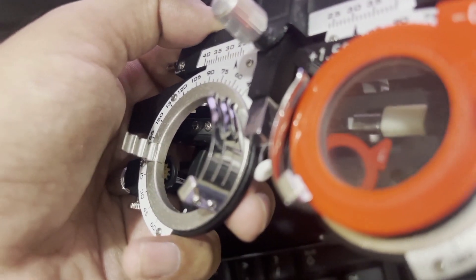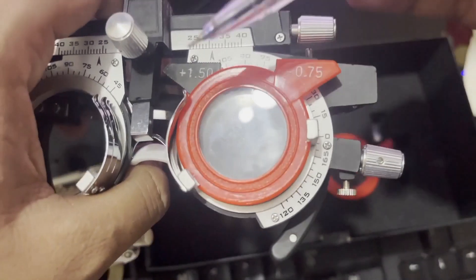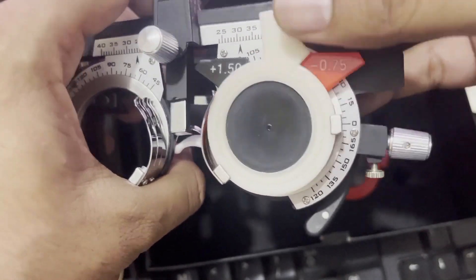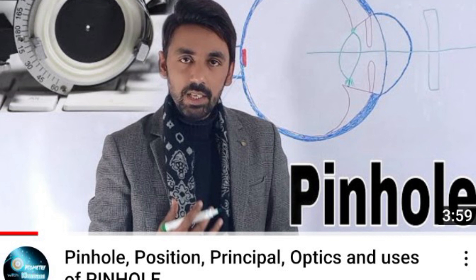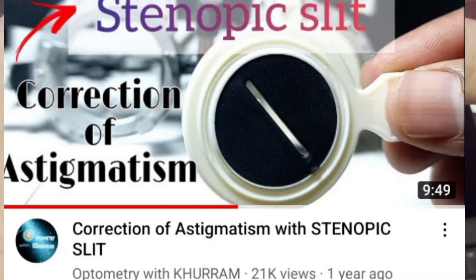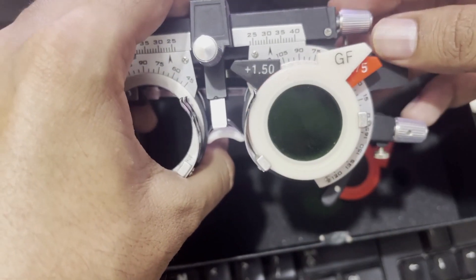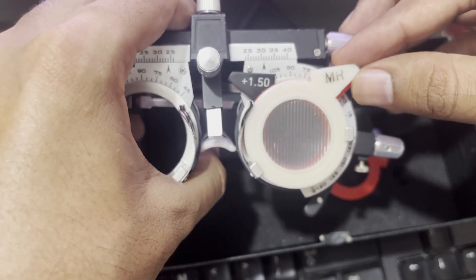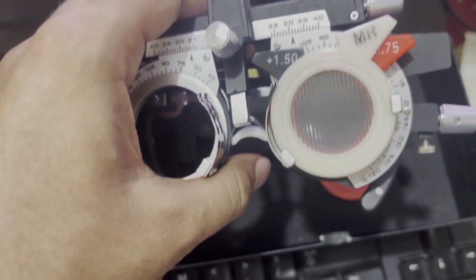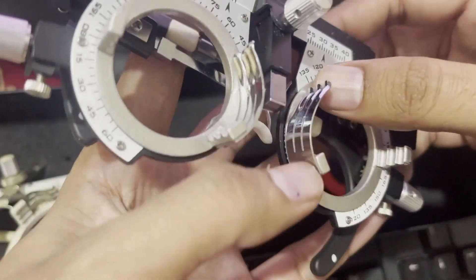The last compartment is for trial box accessories. If you want to put a pinhole, you place it in the last compartment. You can also use a stenopic slit, or filters like a red filter or green filter, placed in the last compartment. Other accessories like prisms, Maddox rod, red and green filters, pinhole, stenopic slit, and the very important Jackson cross cylinder can all be placed in the last compartment.